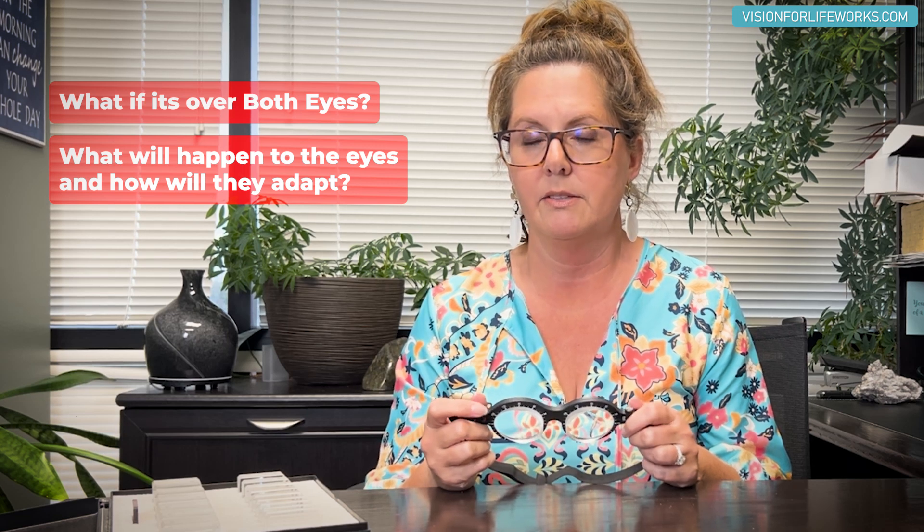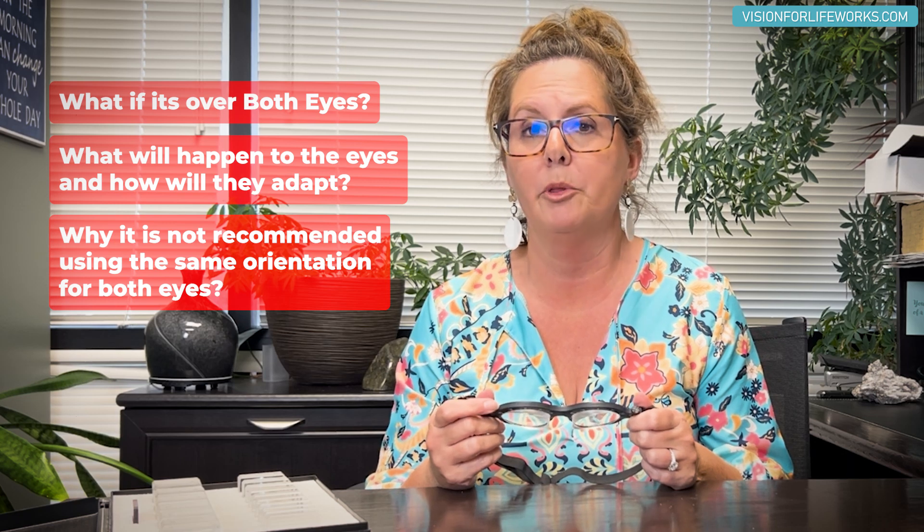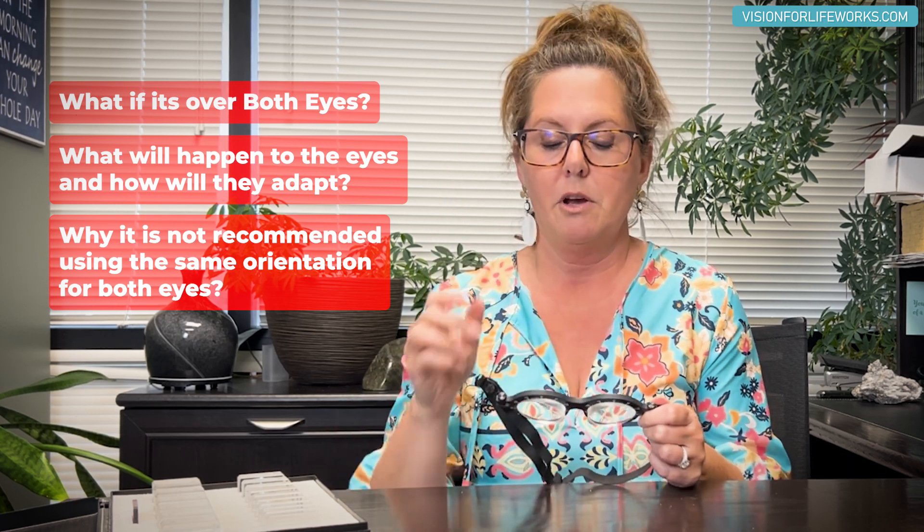With a base-in prism in front of both eyes, you should see my eyes shift outward to try to line up and see the fused image. This is 20 prism diopters — it's a lot — so my eyes shift trying to adjust and get the image to come together.